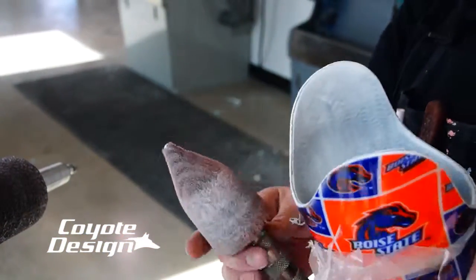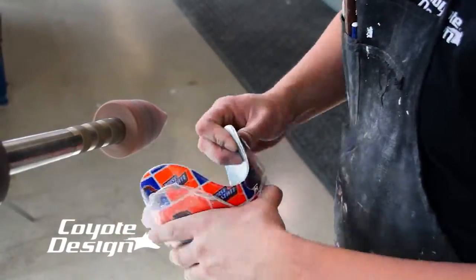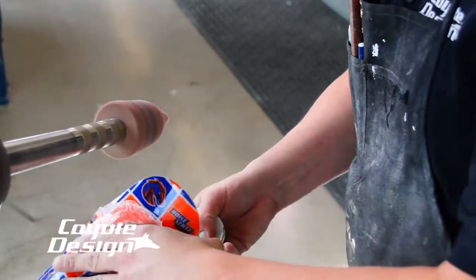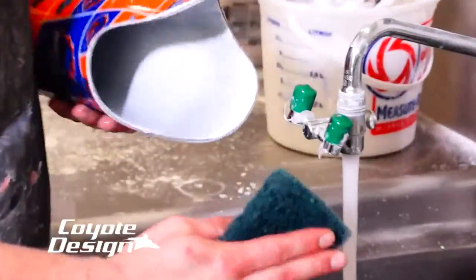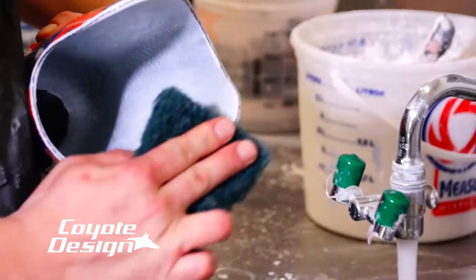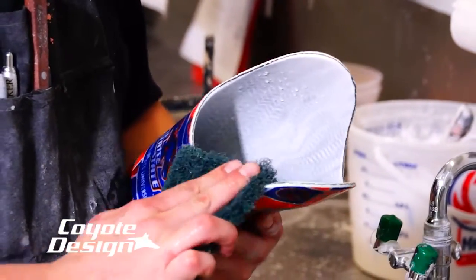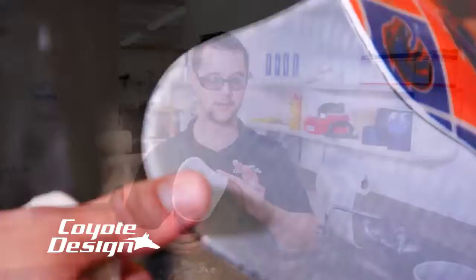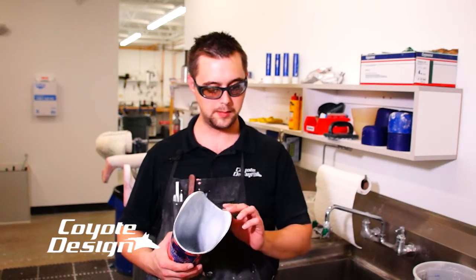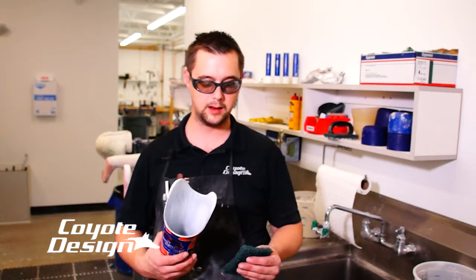After I'm done with the medium buffing cone, I take the pink Tightro wheel and do the same thing — it just gives it a nice buffing edge. Then just bring it over to your sink with some Scotch-Brite, wet it down, wet your Scotch-Brite down, and finish it off with that. This leaves a really nice smooth edge — no squareness, no high spots, nothing's going to cut you. That's the really nice thing about doing that extra step with the Scotch-Brite. It gives you that little bit more smoothness than the Tightro wheel can give you.